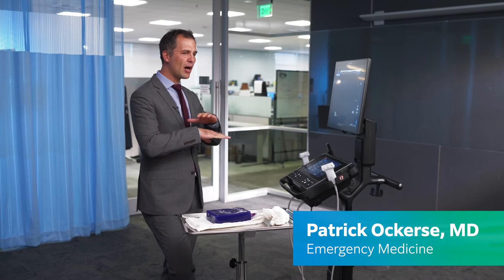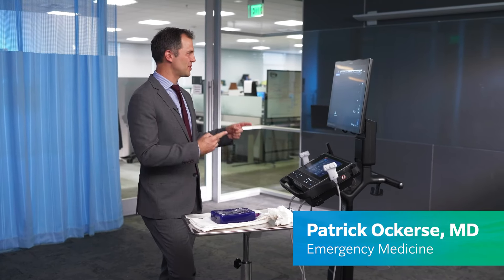I think this is so clearly something that we need. If I'm already turning off my lights at home and turning on my oven with voice commands, it should be expected that we'd be able to do the same thing with medical devices. It's surprisingly fast and responsive. Sometimes voice activation complicates things, but I feel like this one simplifies it.